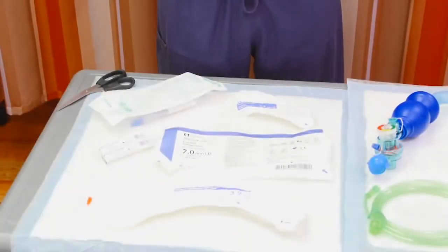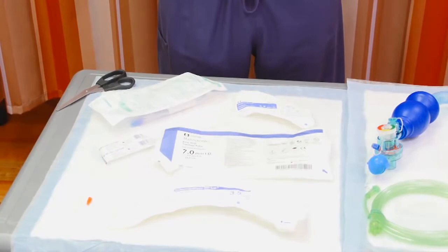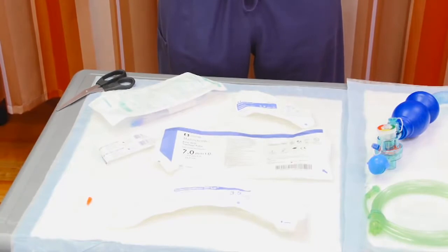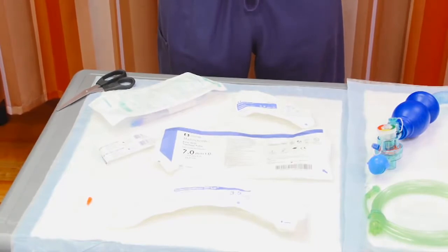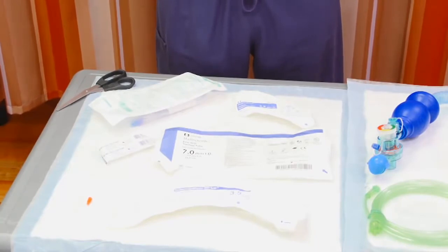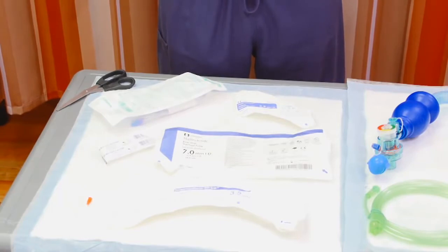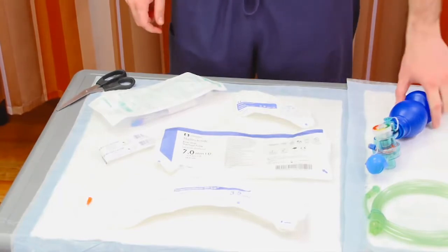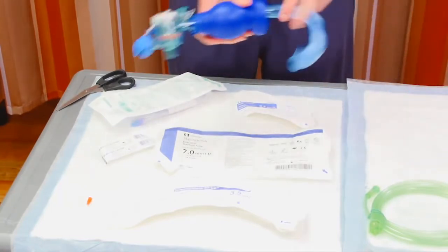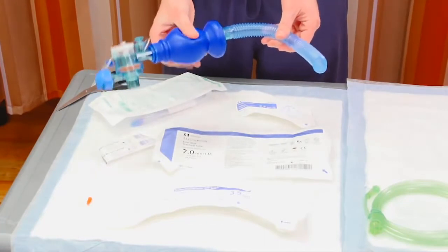There are three possible setups for bagging through the angiocath. You can use high pressure oxygen tubing, but again, that takes a while to find. Additionally, for children under five who have smaller total lung capacities and smaller tidal volumes, bagging is preferred over jet ventilation.